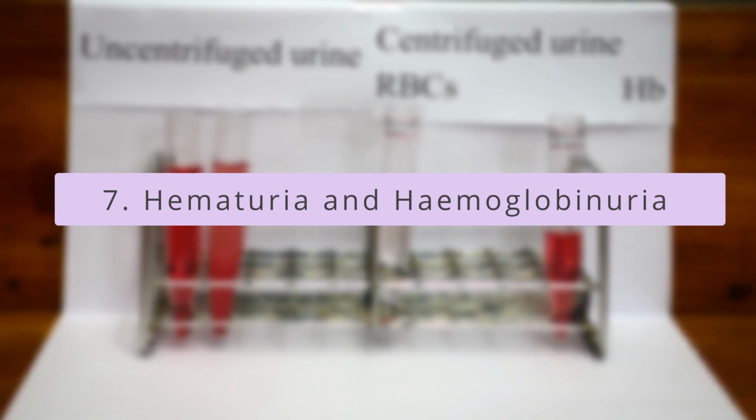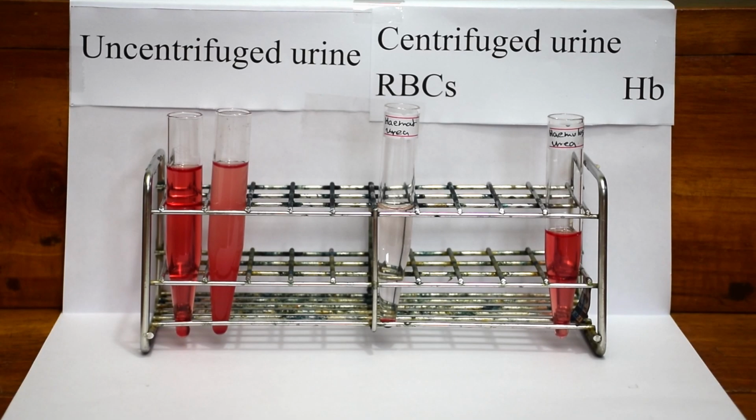Blood may be present in the urine either in the form of intact red blood cells as in hematuria, or as the product of red blood cell destruction, hemoglobinuria. Next, we will see how to distinguish hematuria from hemoglobinuria.